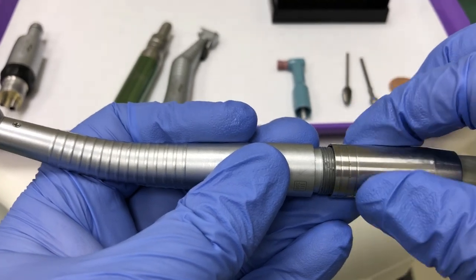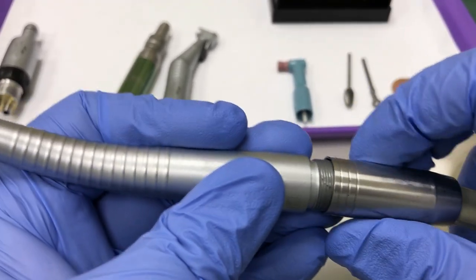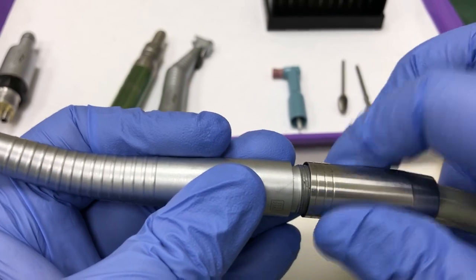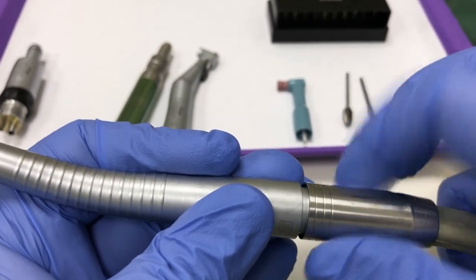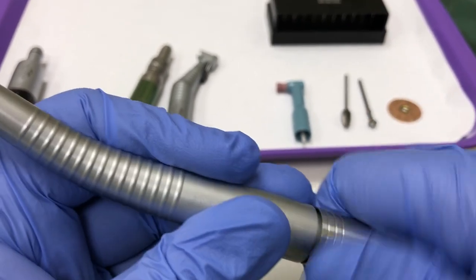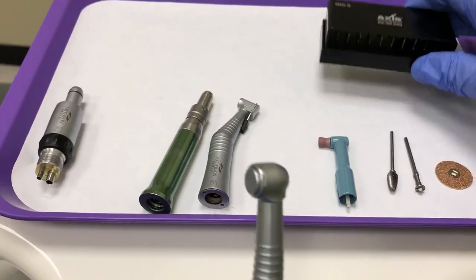Do not turn the hose. Turning the hose can twist and break the tubing inside. Secure the coupler and select the appropriate burr called out by the instructor.